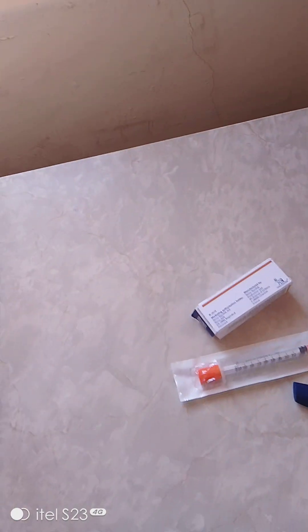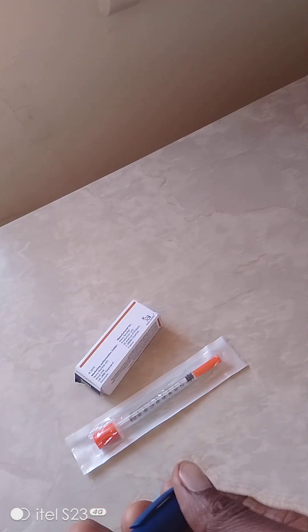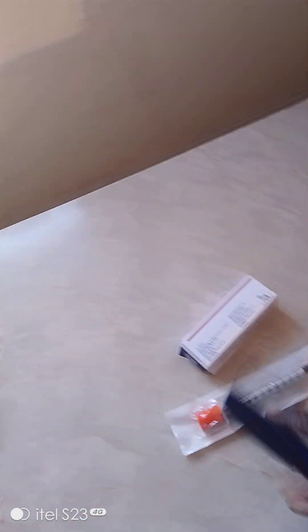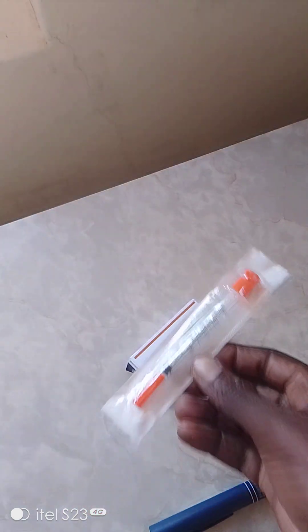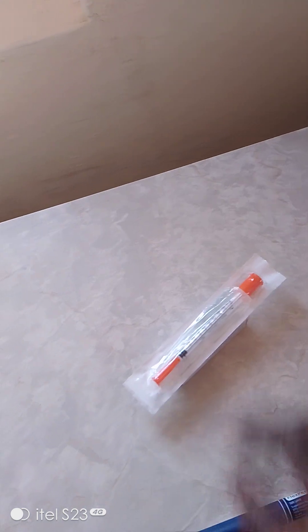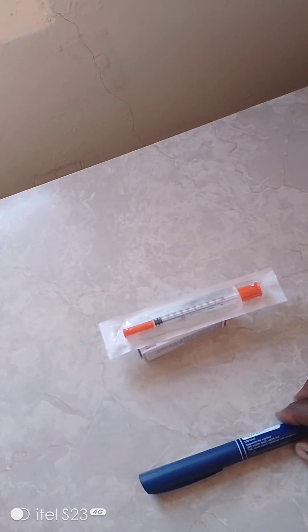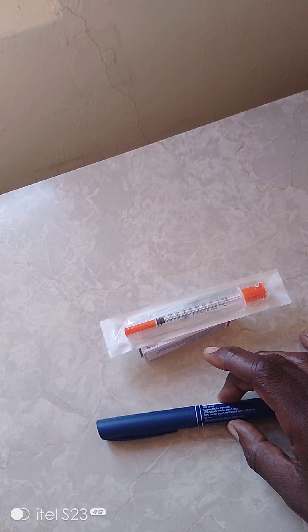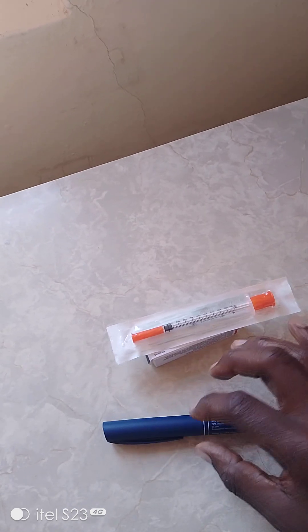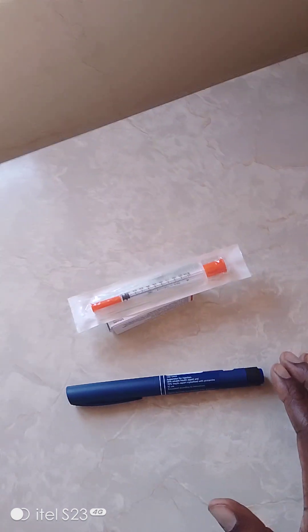This is advantageous because patients don't need to stress, and mostly this is not painful, and they can travel with it without any stress. Compared to the 100 units syringe and needle, with that you need to travel with the drug kept in a cool place - meaning ice packs - which is so stressful. With the flex pen, you can move with it just in a bag; it has insulin already and a needle already attached.